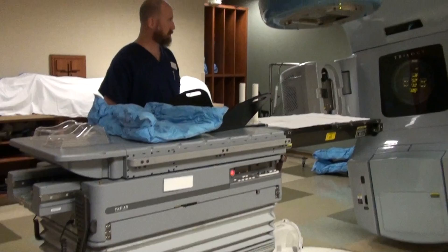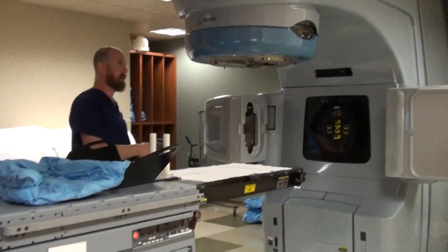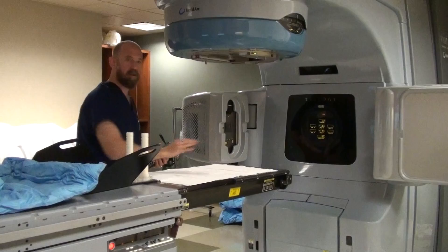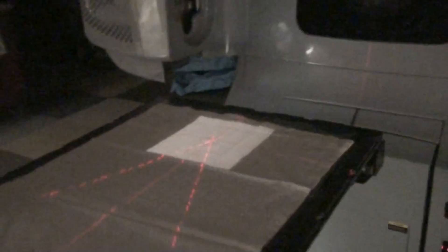One of the first things we talked about on the handout was a beam's eye view. If you'll recall, we spoke about looking at the patient as if you were inside the treatment machine looking straight down — that is the beam's eye view. The beam comes out of the machine toward the patient. Then you have a field.